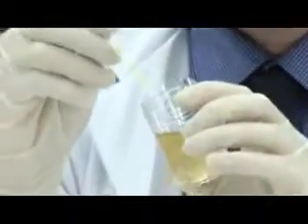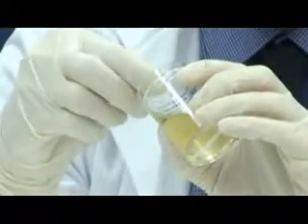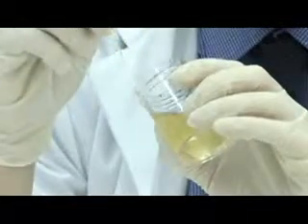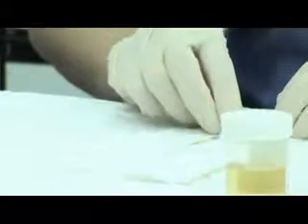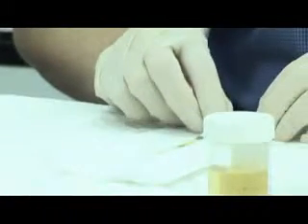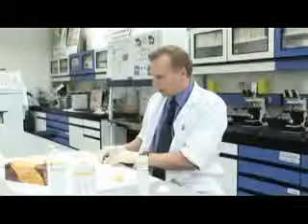So basically we have a urine sample here. We insert the strip into the urine sample, making sure that it's thoroughly immersed and that all the squares are wet so that the chemical will react. Okay, and looks like we're already getting a chemical reaction. So first I'll blot off the excess urine on the strip onto the paper, and at most it should take about a minute.